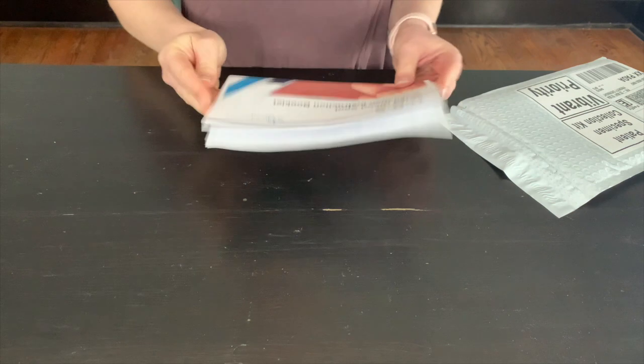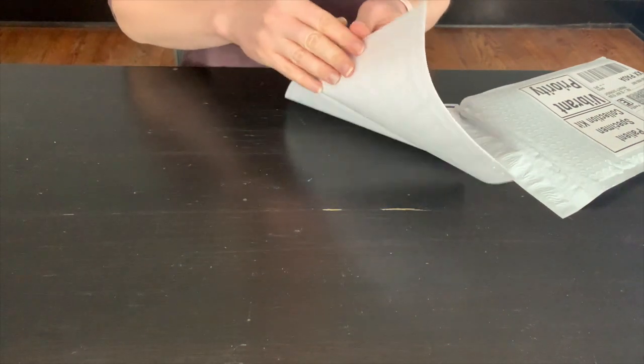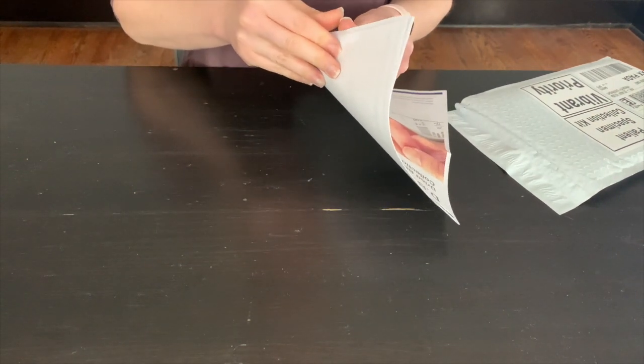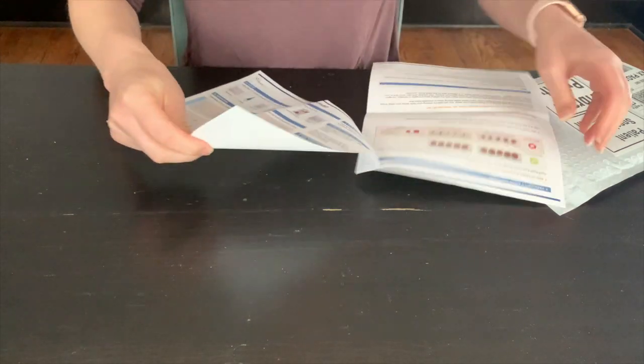When instructed, open your kit and lay out your materials according to the placemat which can be found on the last sheet of your instruction booklet.